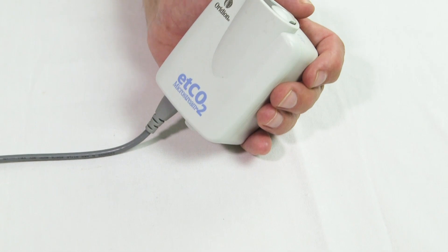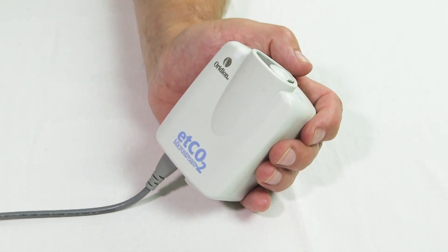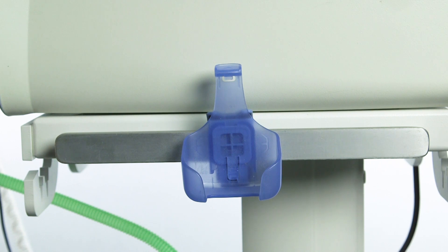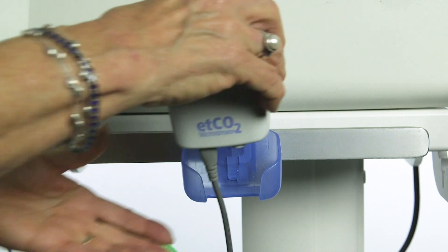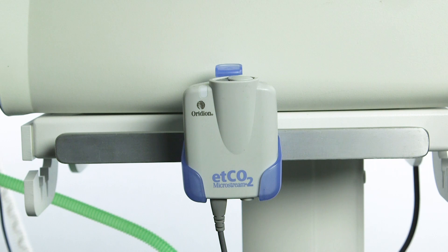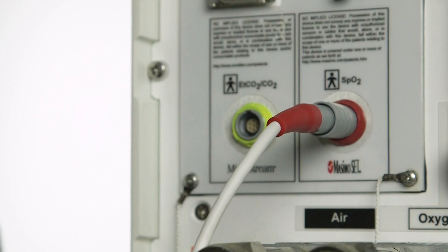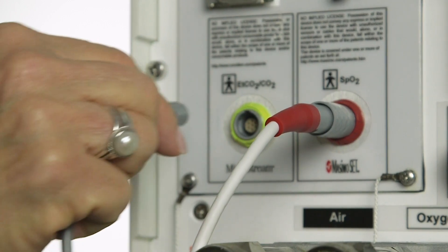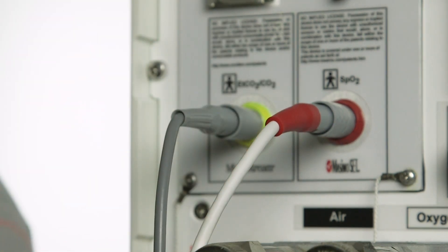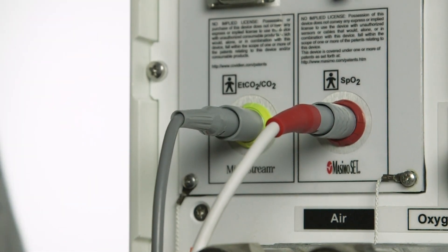The CO2 measurement uses Micropod technology. The Micropod module should be mounted vertically on the rail located on the side of the ventilator trolley using the supplied holder. To use the Micropod module, plug the cable into the CO2 port on the rear of the SLE6000.